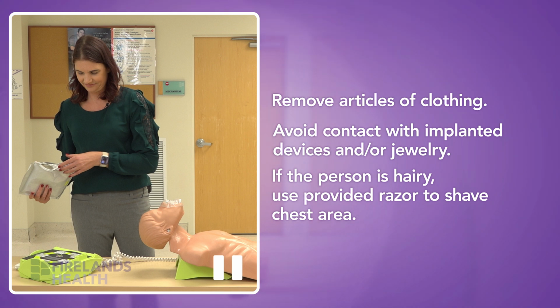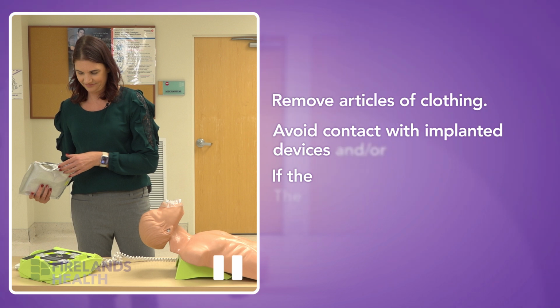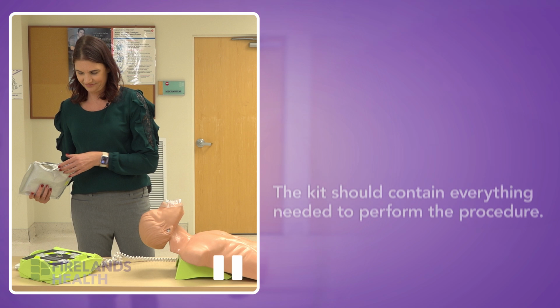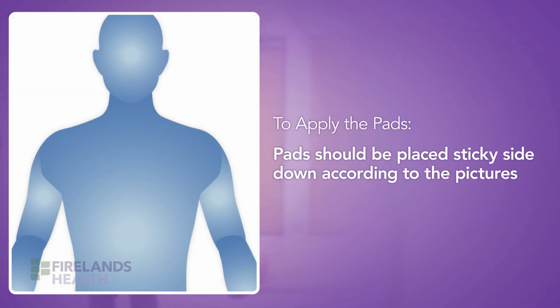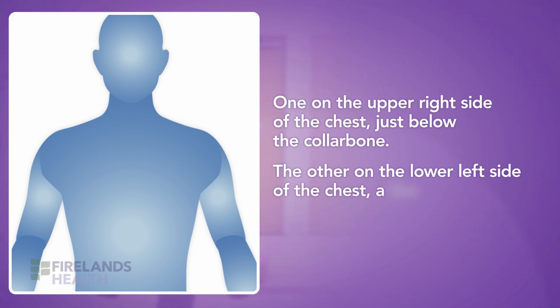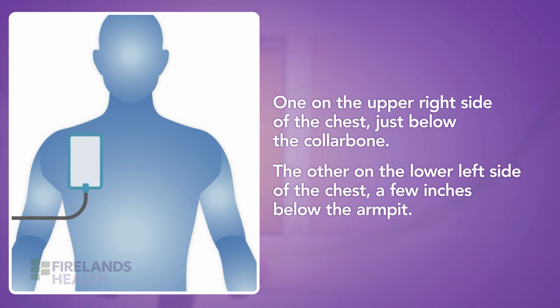That razor should be provided in the kit with your AED, along with a towelette if needed, gloves, an alcohol wipe, and any other equipment that has been provided with the AED. Next step will be to apply the pads. Applying the pads is very simple if you follow the pictures on the package. The pictures on the package show you that one needs to be placed up and one needs to be placed down.